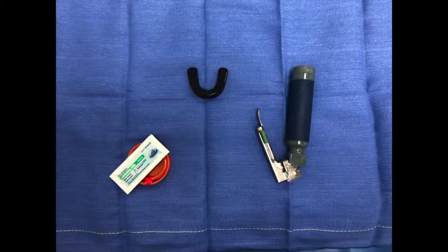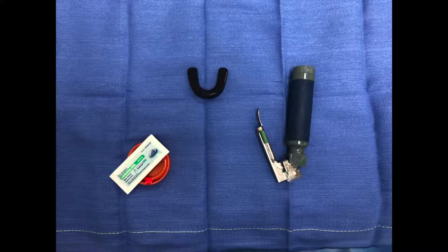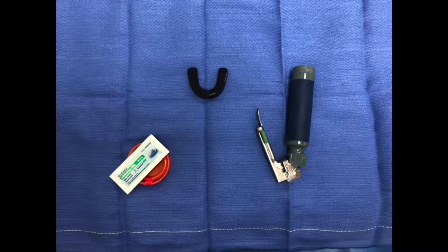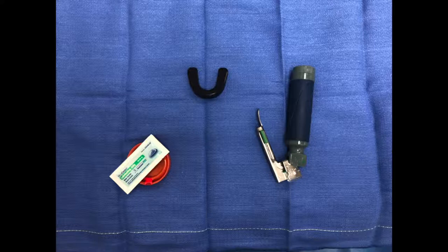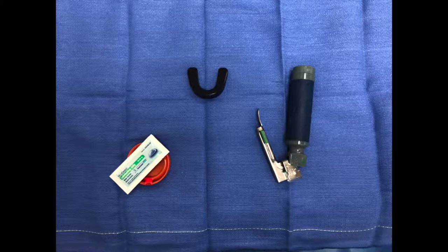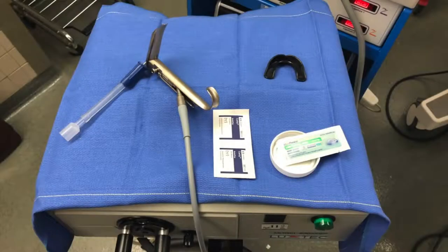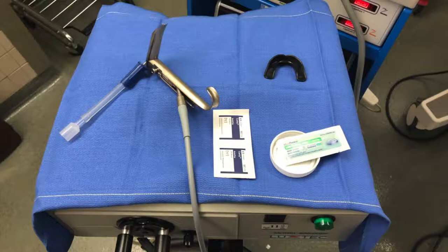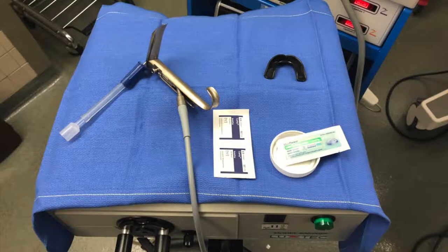The Mayo stand set up with the Miller laryngoscope is shown here. The light box with the Parsons laryngoscope setup is shown here.